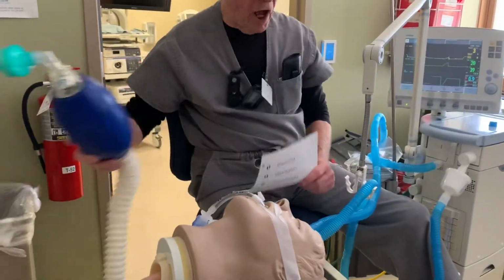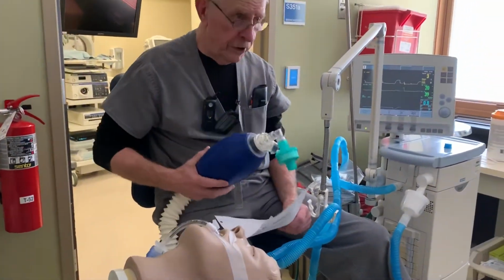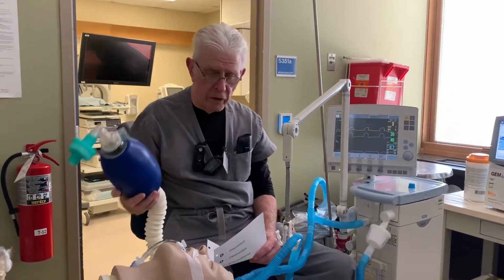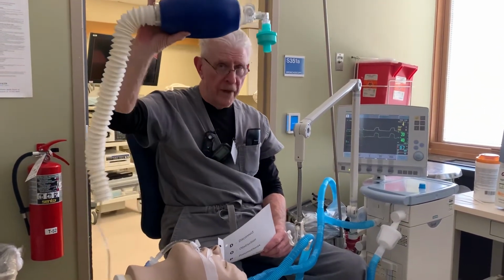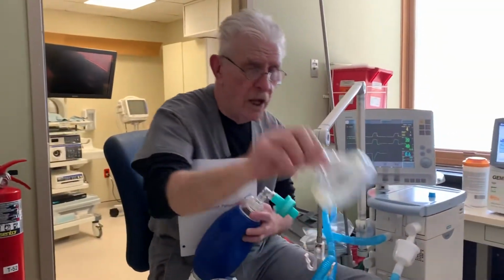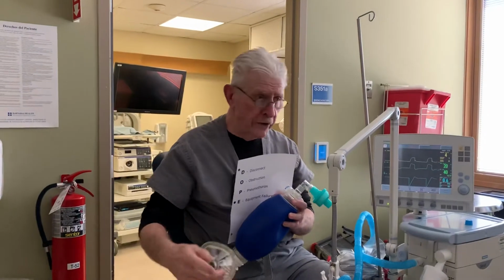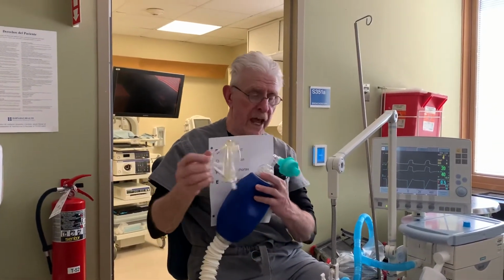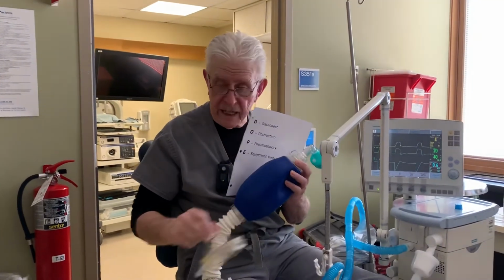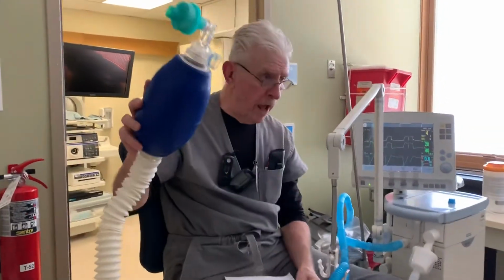All right, if you're not sure at that point what to do with that ventilator, and the respiratory therapist is somewhere else, that's why you have your backup, this manual resuscitator there. And it is not complete without its mask. Should that tube come out and you have to respond to that, you need this bag and this mask together. They're not complete without both of them.